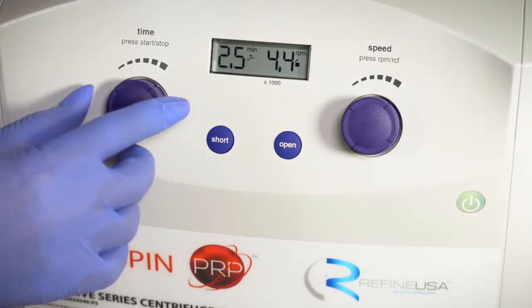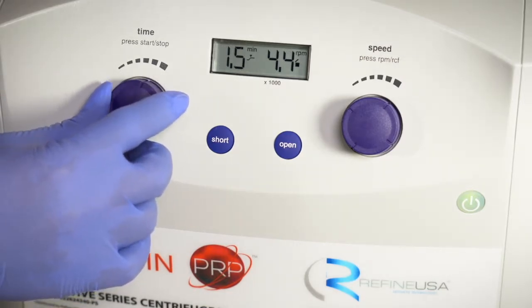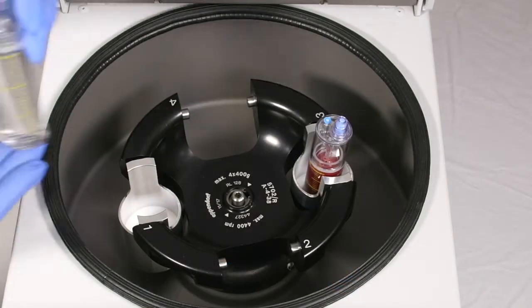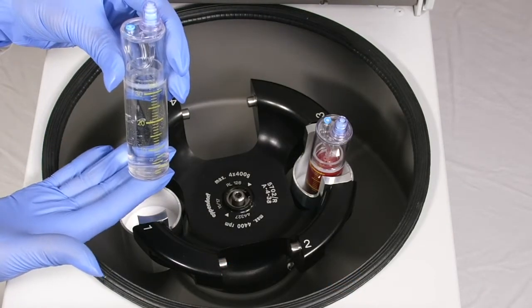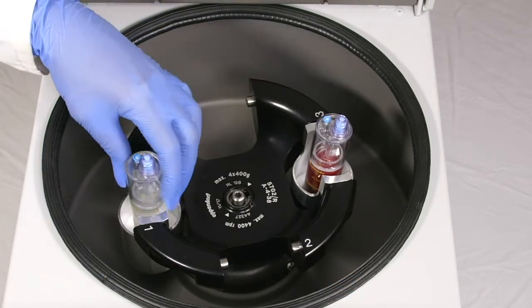It is equipped with fully automated digital display and dial controls, which allow for quick adjustments. Inside is a self-balancing rotor system with lightweight and chemical-resistant fitted buckets.